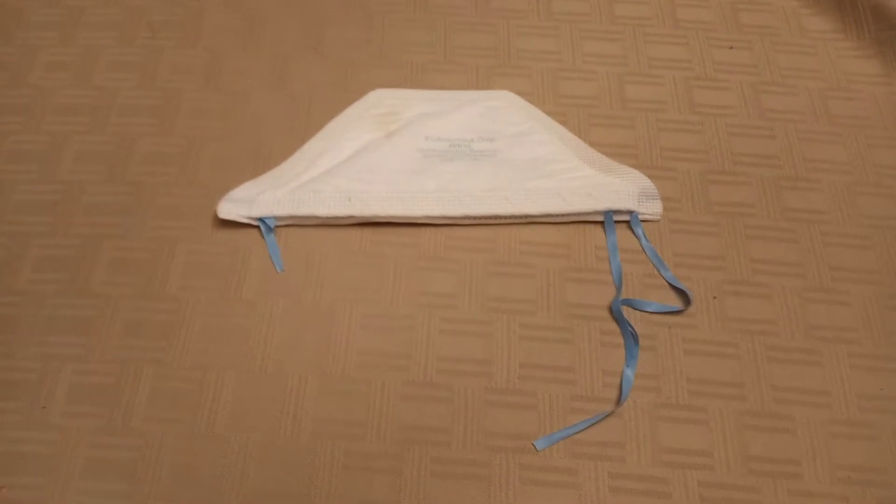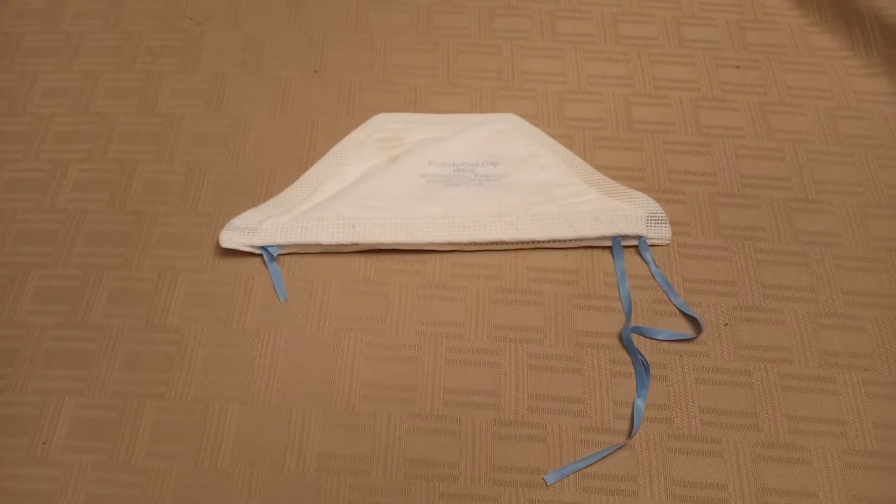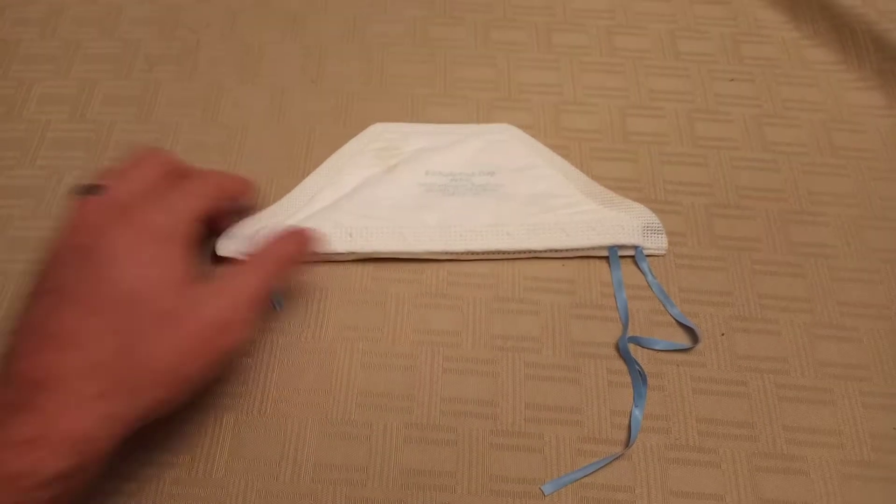Hello, everybody. Just wanted to make a quick video on how to repair a broken strap on an N95 mask, particularly this style.